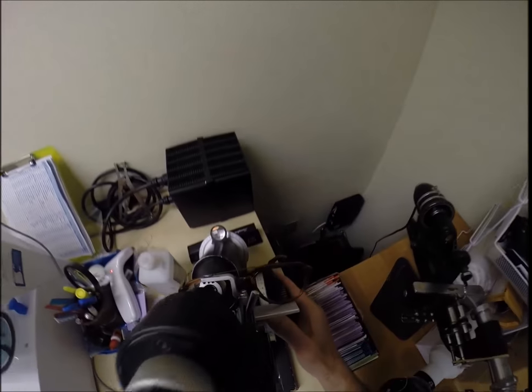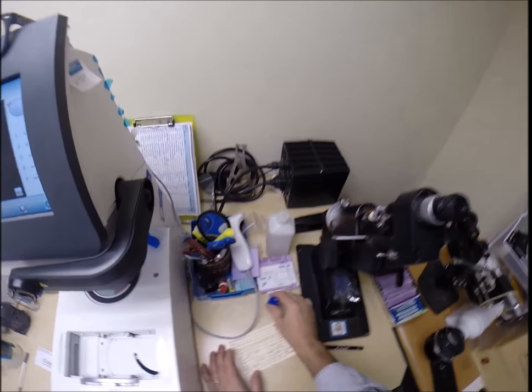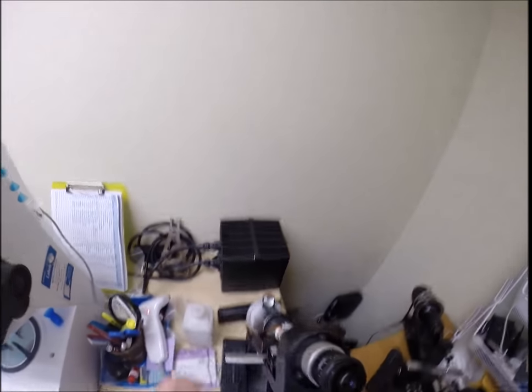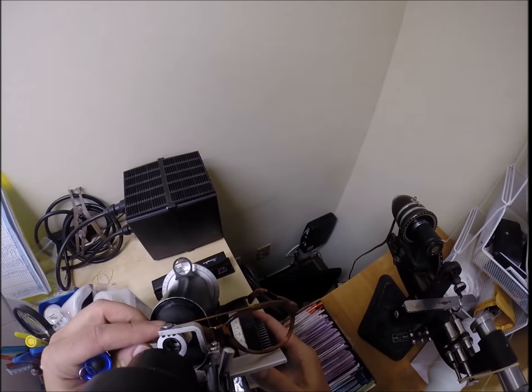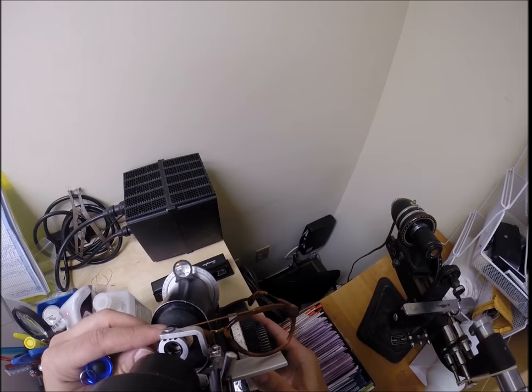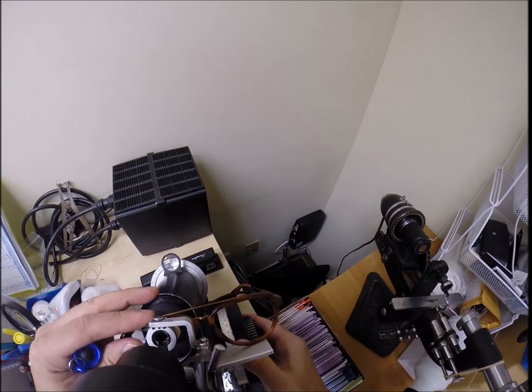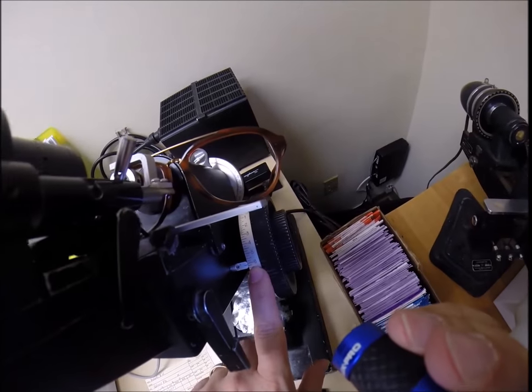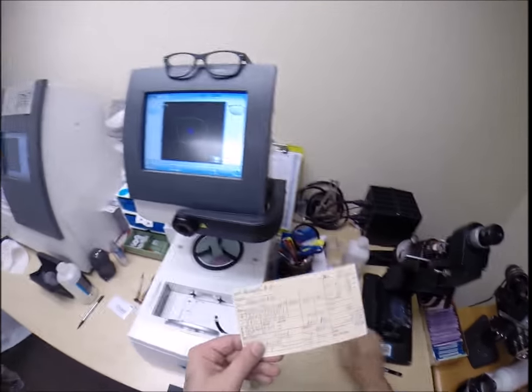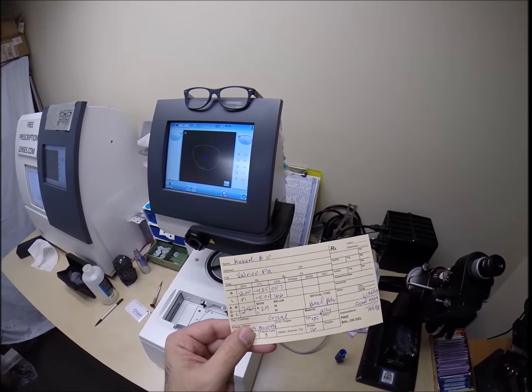Let's check the second curve. And we're at six and a quarter. One tick mark past six. That's because we add two like signs together. Minus two and minus four and a quarter makes six and a quarter. Using today's terms, if someone had borrowed two dollars from you and then they borrowed another four dollars and 25 cents, they would owe you six and a quarter.